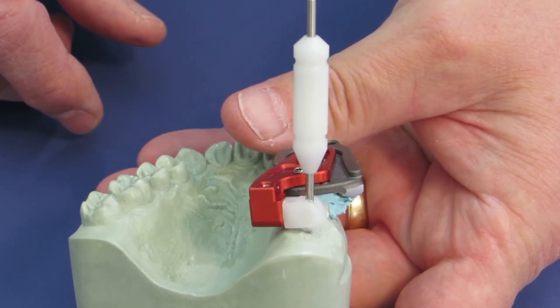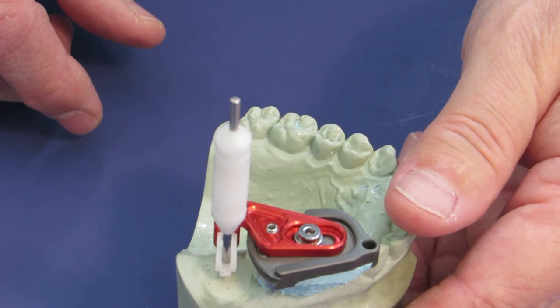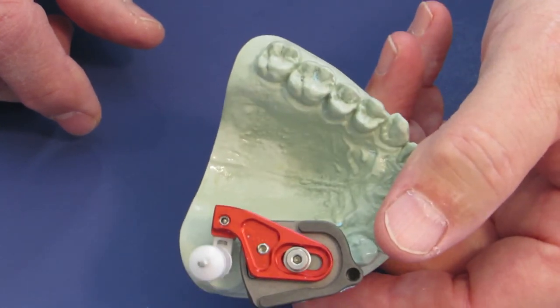In about three minutes you go from out of the box to ready to do surgery. Fully mechanical, wonderful guide.